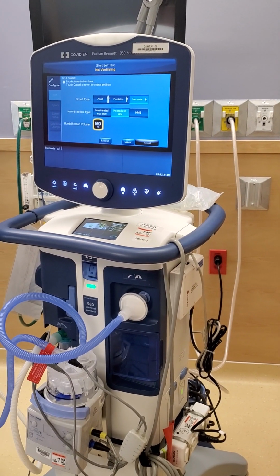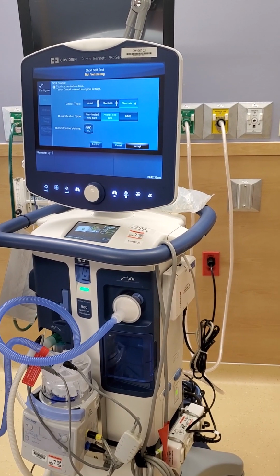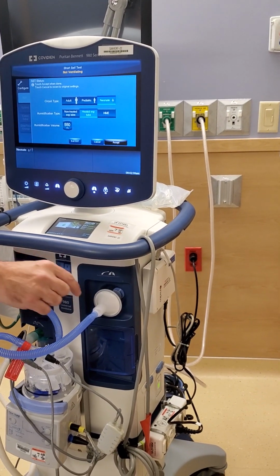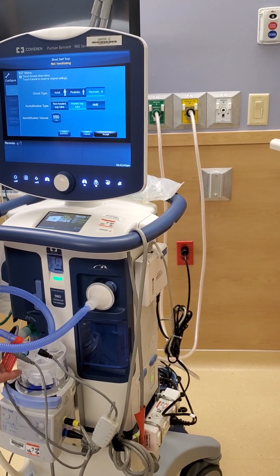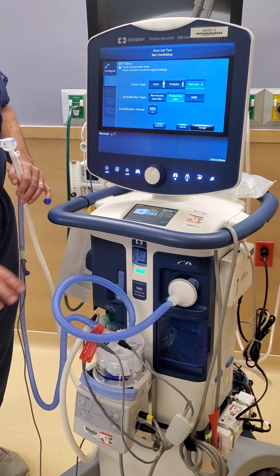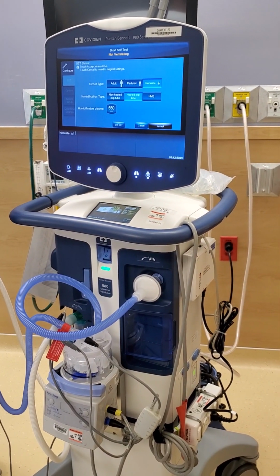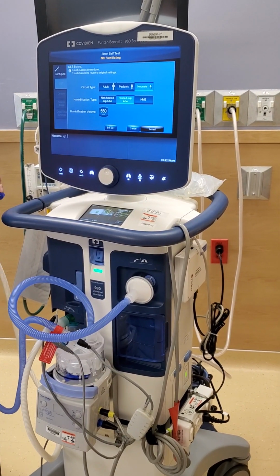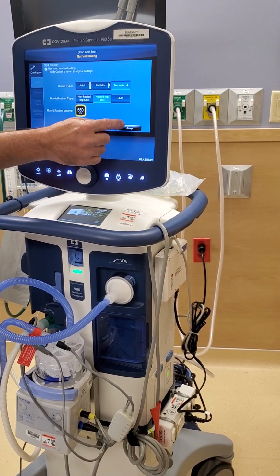But when you're talking about very small tidal volumes, we want to do everything we can do to make it as accurate as possible. So what our engineers did was they tested these circuits and heaters with water in them up to temperature, and they found out exactly how much volume is in this tubing as well as the chamber. And it turns out for F&P, that number is 550. So that's why the number is different. We're not changing the adult one, that stays at 290, but neonates, it's going to be 550 is the number, okay? So press accept.